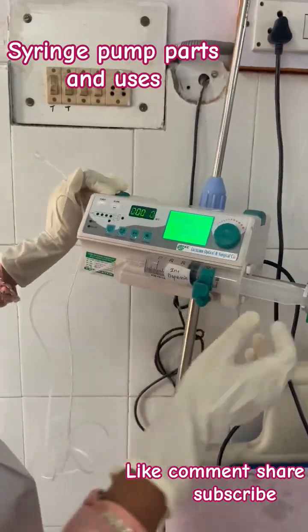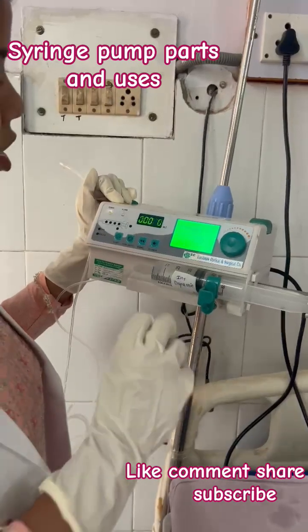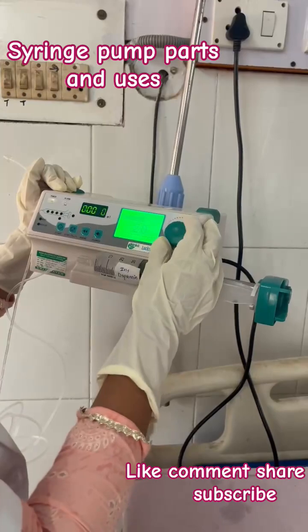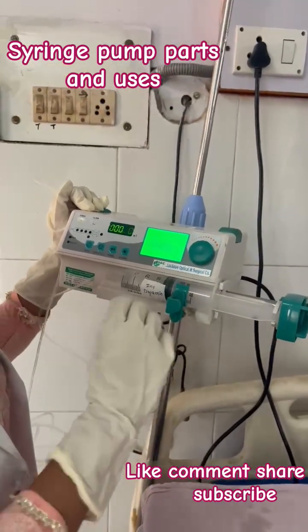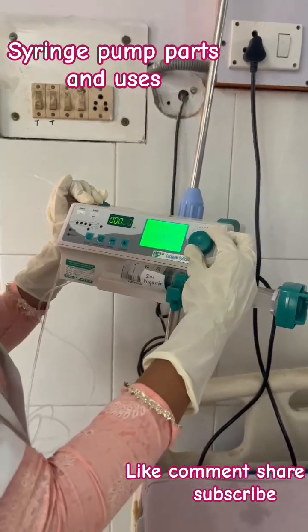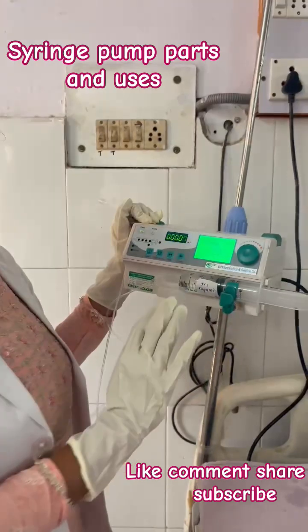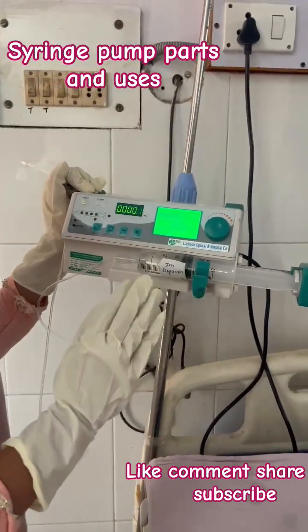Then you have to set the flow rate of the injection. For example, the prescribed amount of injection dopamine is 2 ml per hour. First click on this, then set the prescribed flow rate — we will set 2 ml. Then you have to set the amount of injection.